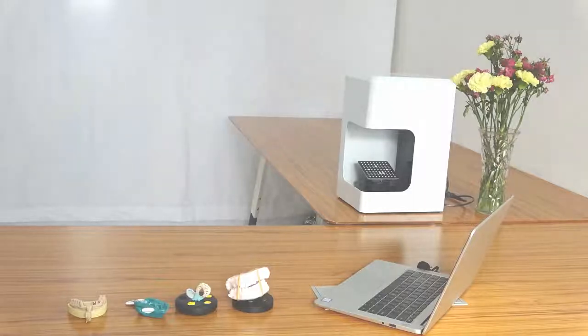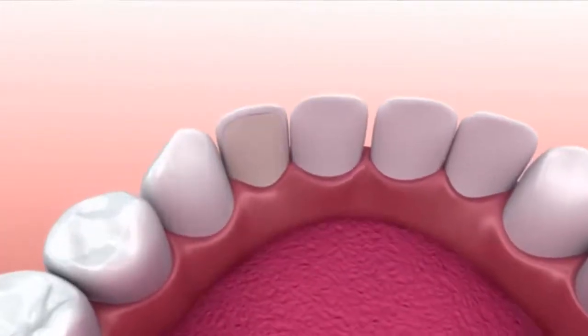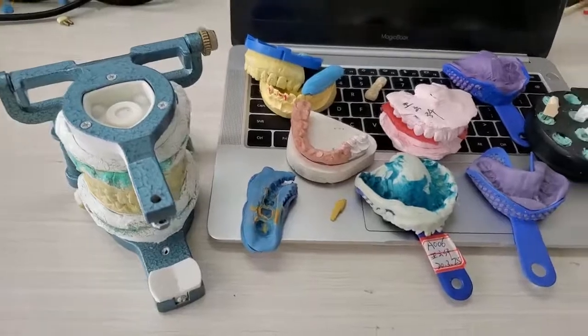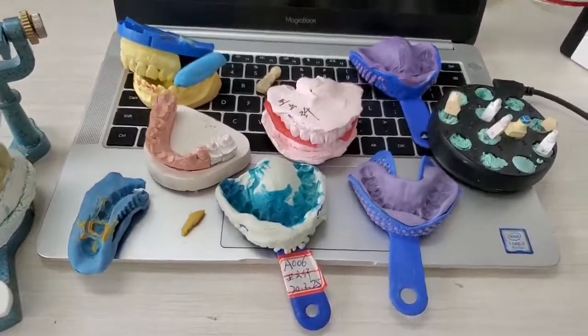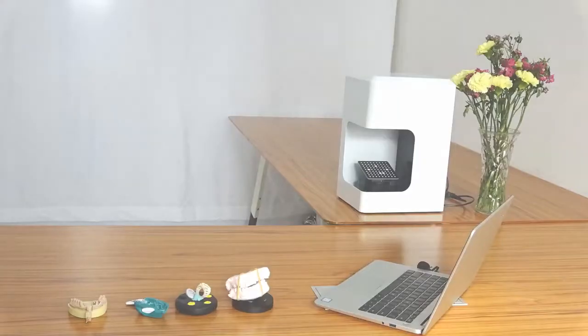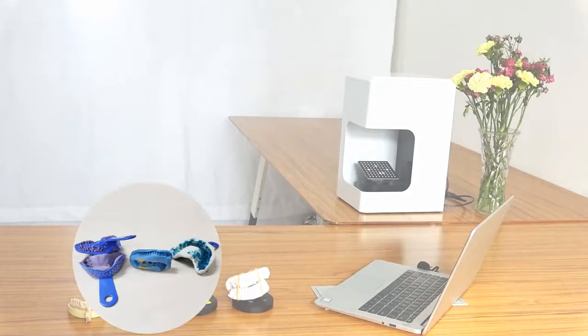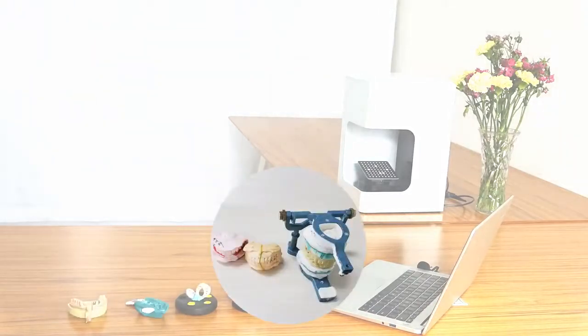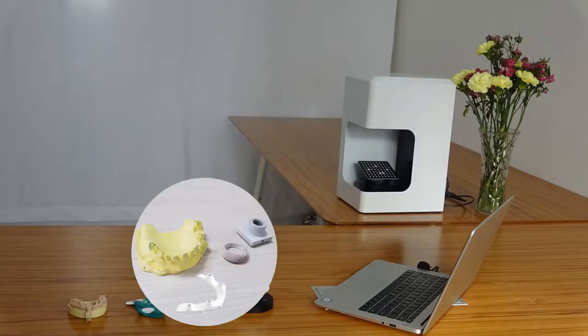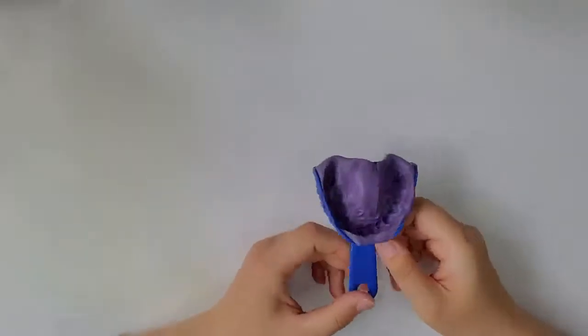Since most of our users are in dentistry, and the stationary scanner mainly scans models and impressions, I will explain the required functions specifically. Firstly, I'd like to divide the functions into 4 parts: impression scan, separated model scan, bite scan, single piece scan. The significance of impression scan is that it could save the plaster model procedure.